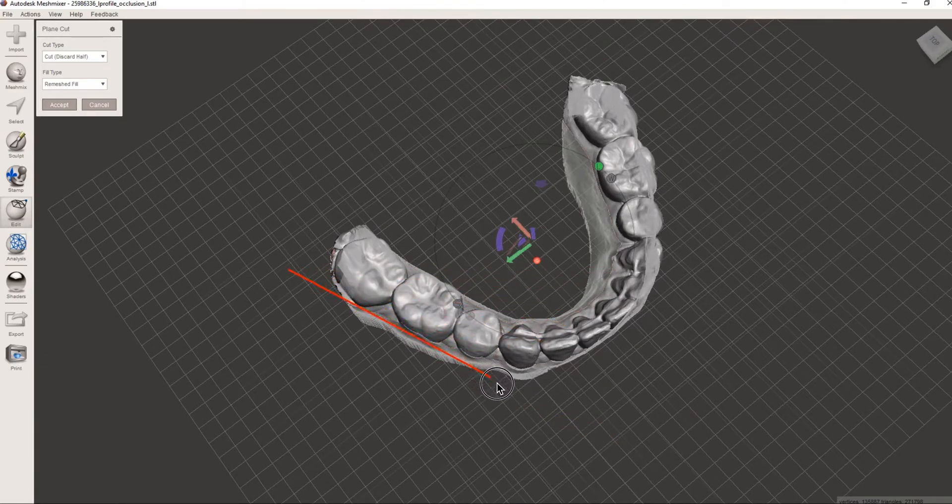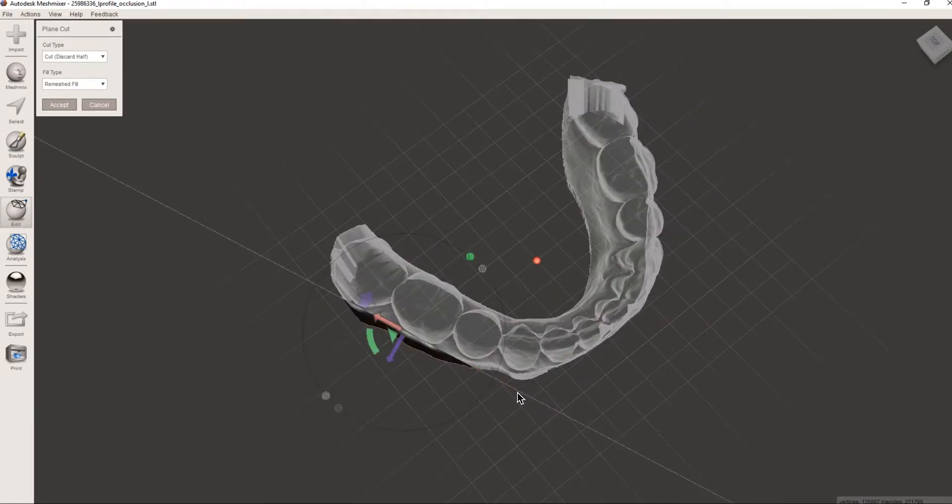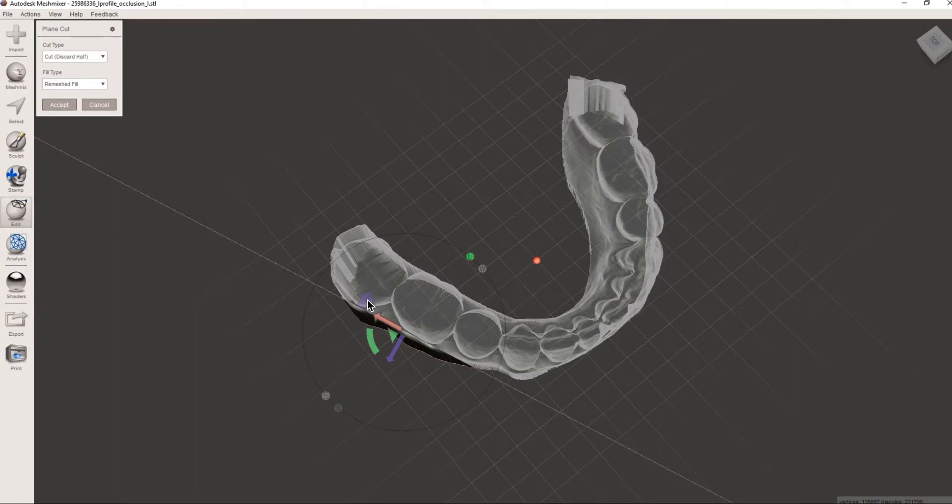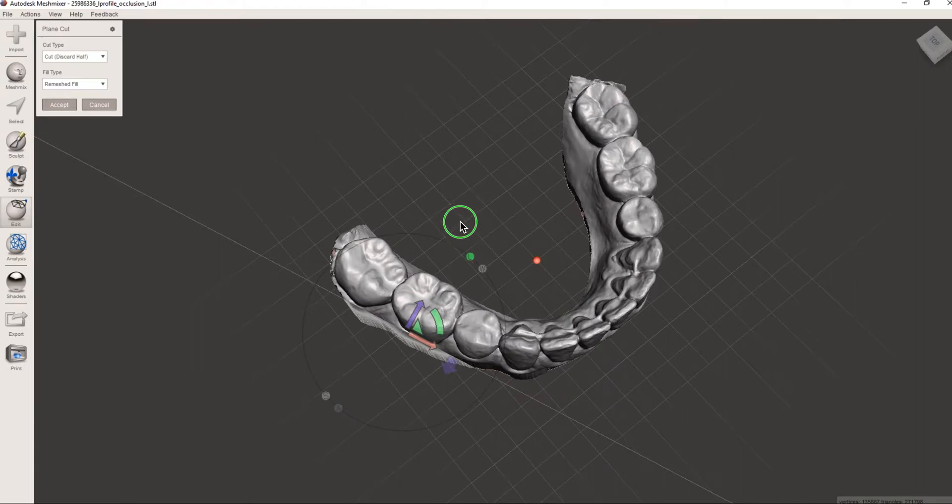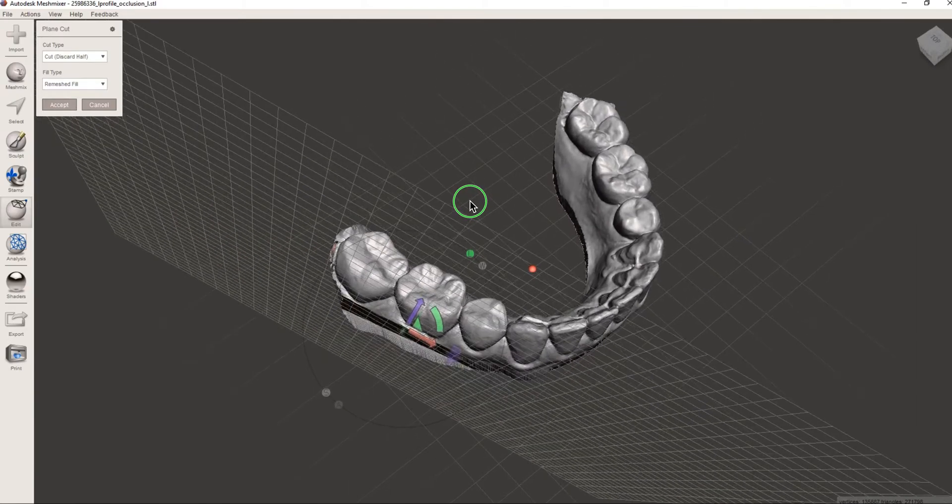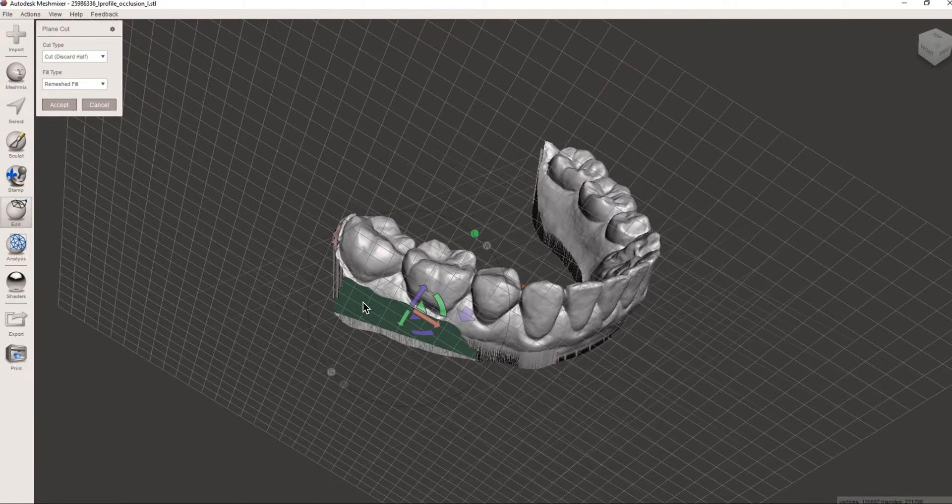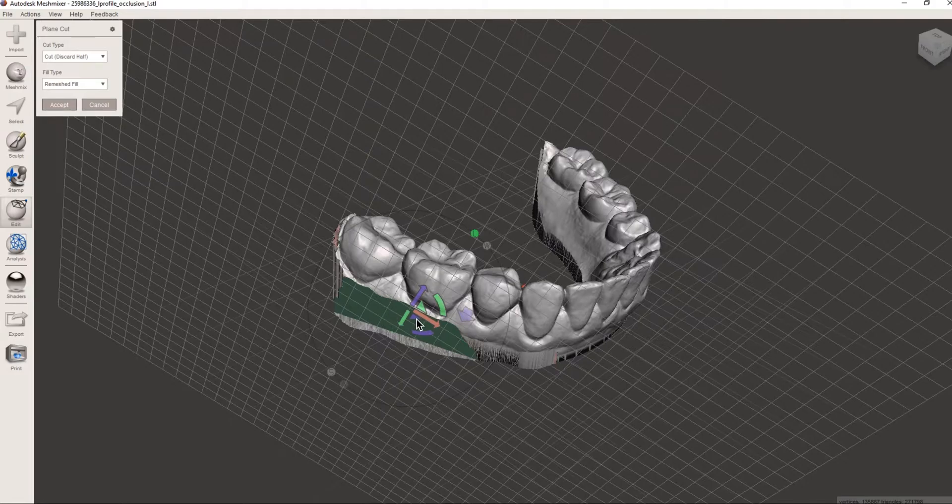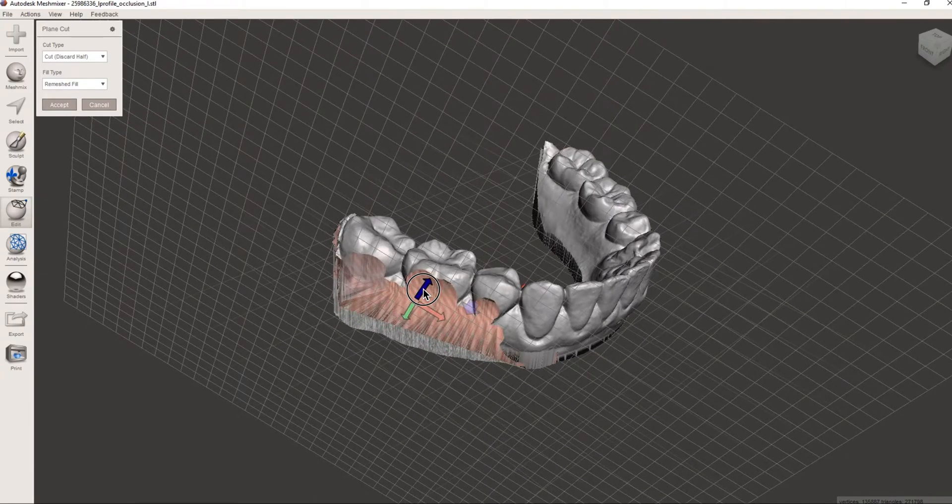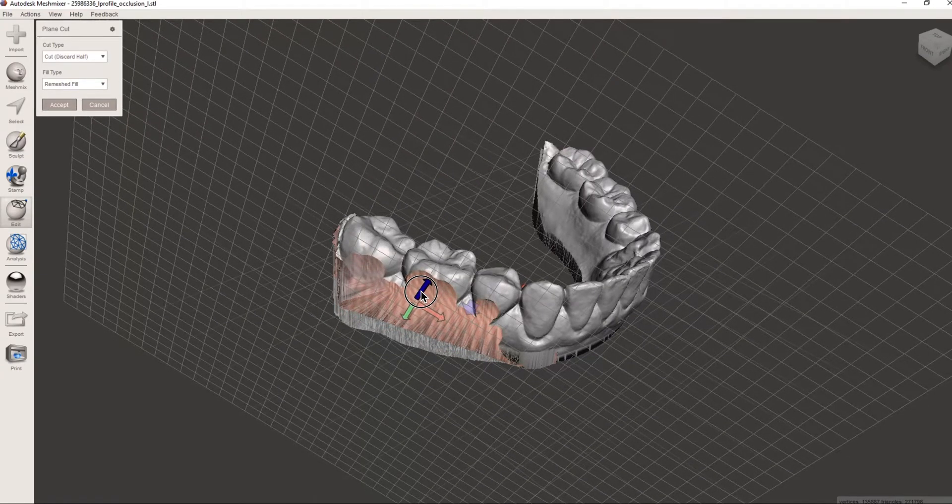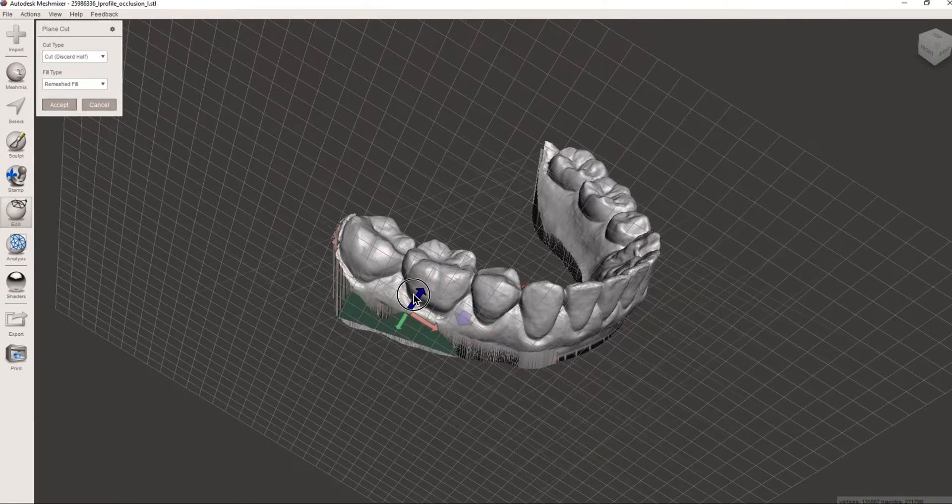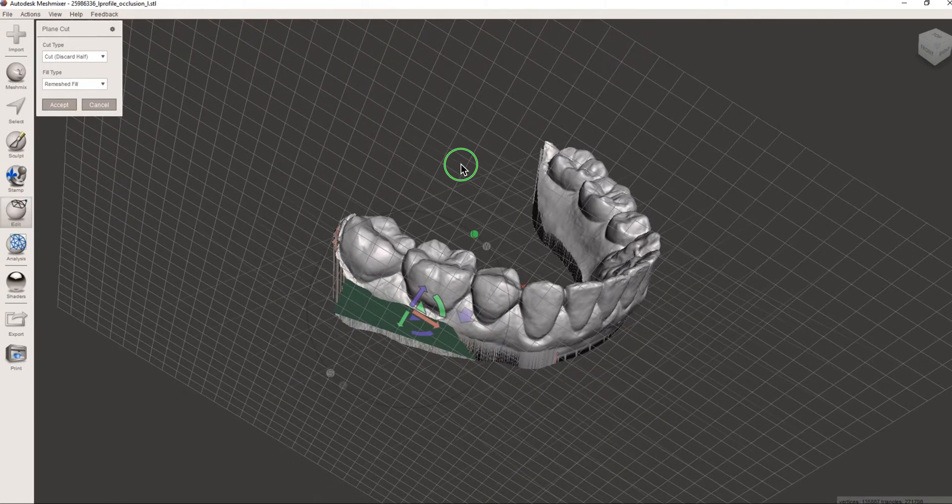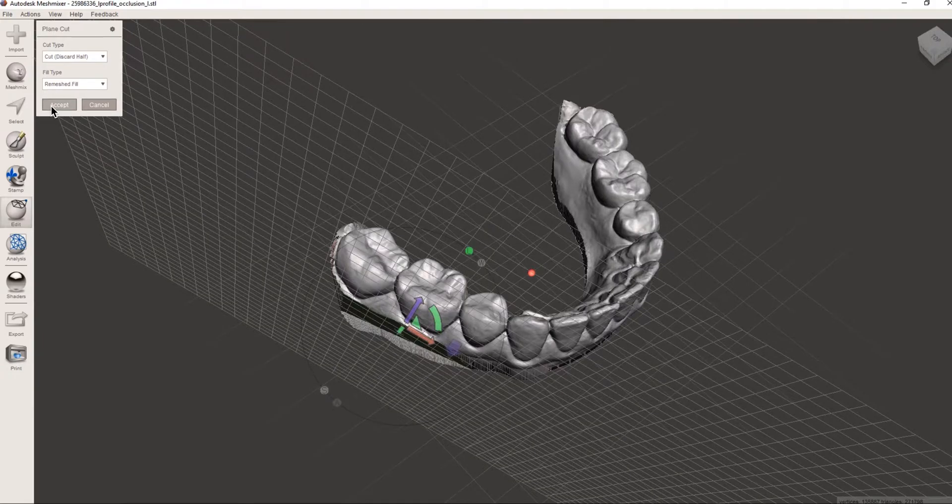It's going to make a slice and once it makes that slice you can see all this turns clear. If we hit this big arrow it's going to swap it and now it's going to delete everything that's not the solid gray color. So once we've made that slice it's important to see that we see all solid green or solid color. If we move it in you can see that it turns hollow. It will not cut properly if you do that.